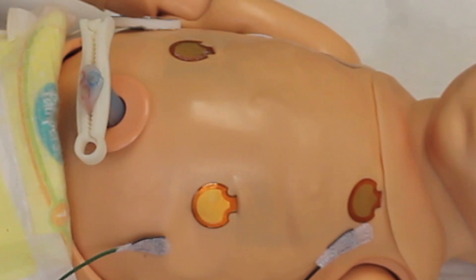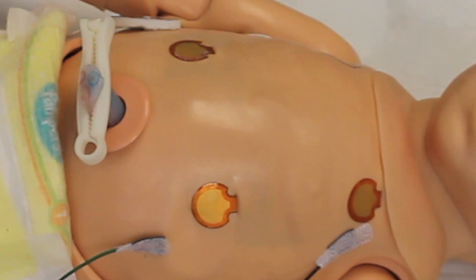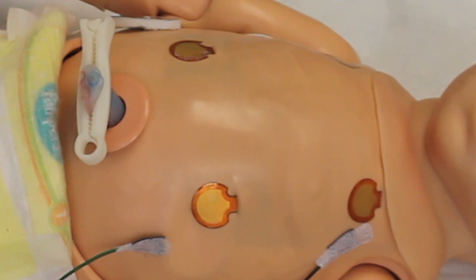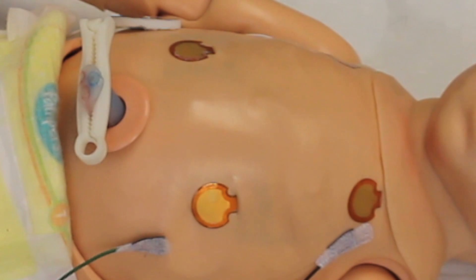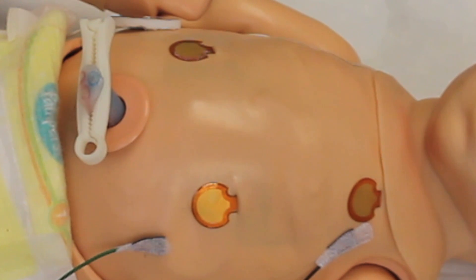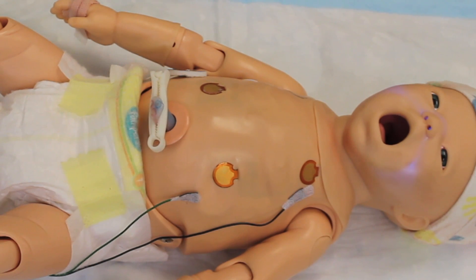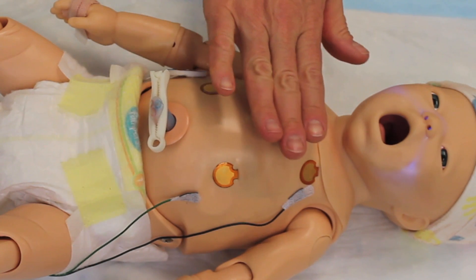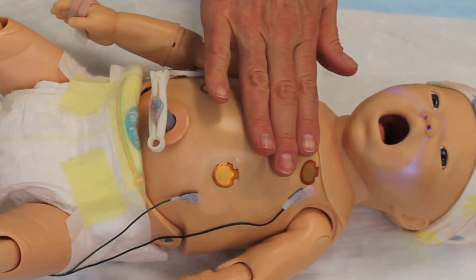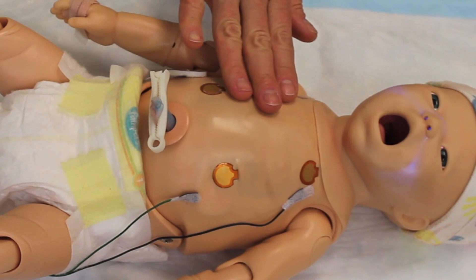Let's take a close look at the chest now. What you're going to see is that the right chest is moving and the left chest is not. If you're not certain whether the baby's having a pneumo, one of the things you can do is lay your whole hand over the chest, and then you'll be more easily able to tell that one side is rising over the other.